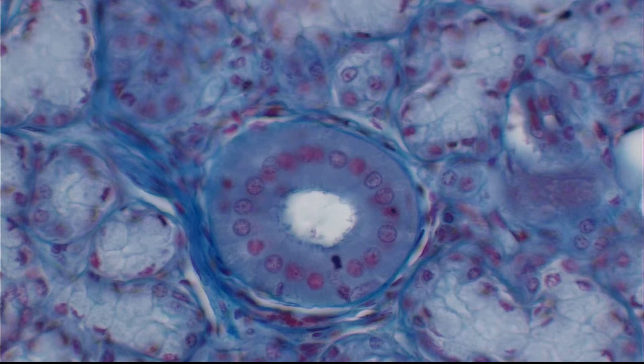This is a video intended to introduce new technology that will allow remote telepathology between two separate locations, whether it's hospitals or pathology laboratories.